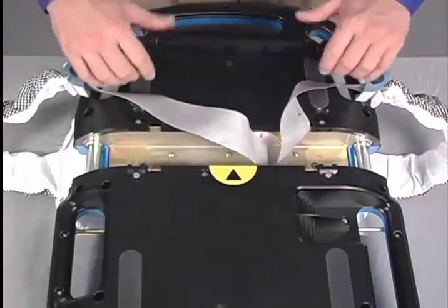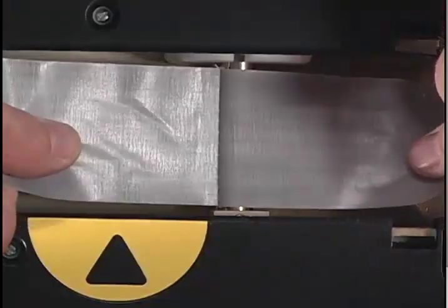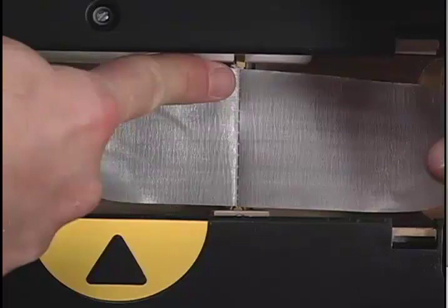Next, pull each of the now-exposed straps laterally. Once this is done, you will be able to see the stitching on the band clip that is seated in the driveshaft, which in turn is attached to the board's internal motor. Remember, do not change out the lifeband if the driveshaft is not in this position with the bands completely unwound.